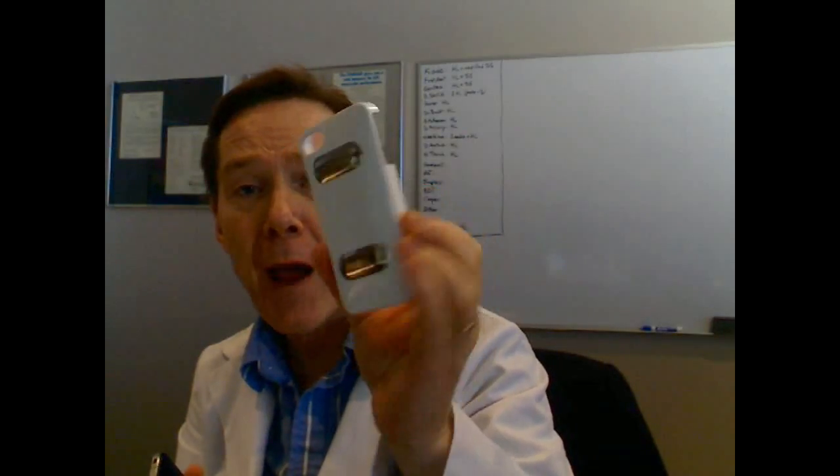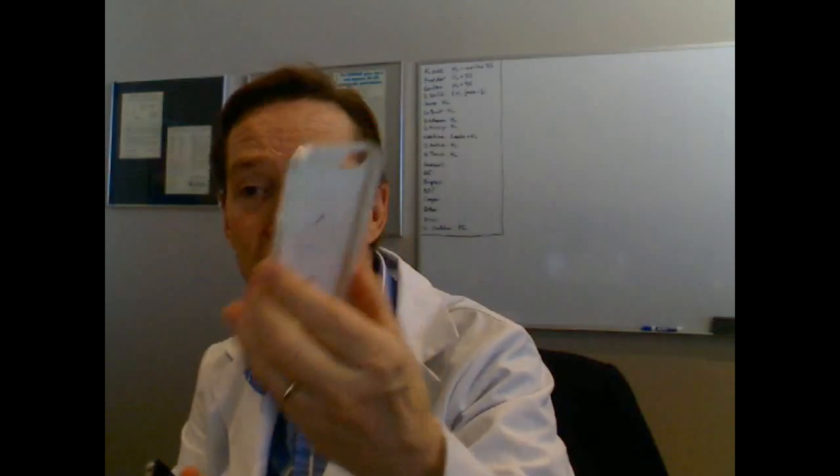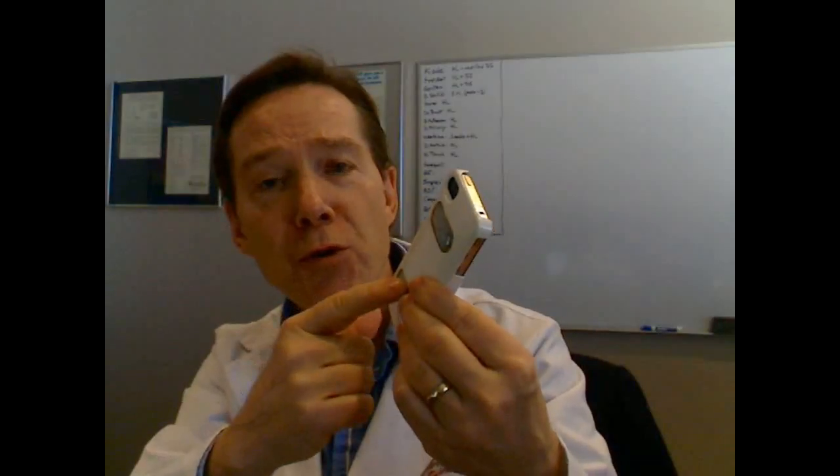very low power wireless case which turns the iPhone 4 into a wireless clinical quality cardiac event recorder. Here are the two electrodes which you can use by either holding the device in your hand or by placing it on your chest, and I'll demonstrate both.